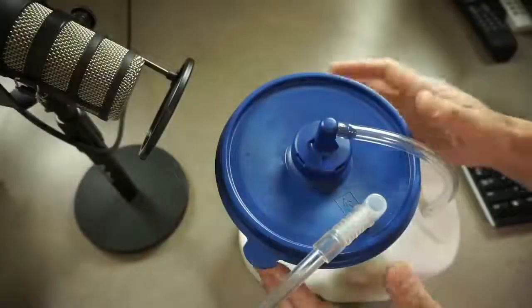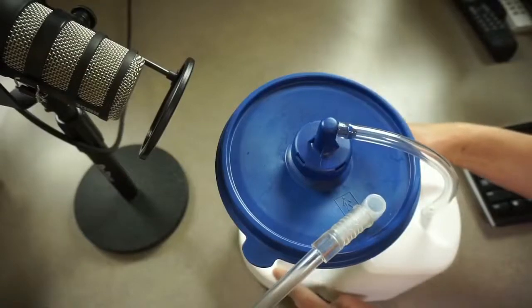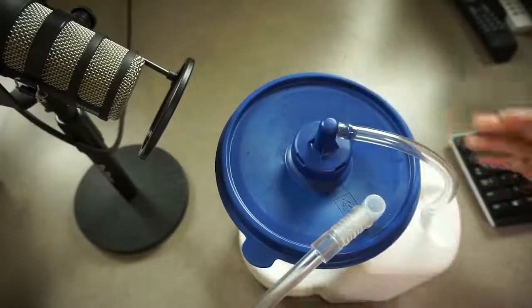Anyway, that is how quiet it's supposed to be. It is not a very loud unit. So if there's any sort of a loud noise, you probably want to make sure that the canister is appropriately seated all the way down into the pump and make sure all the connections are nice and tight. So hopefully this gives you some insight into how quiet it's supposed to be with your Purewick machine. It's supposed to be very quiet. It should not really disturb your sleep.